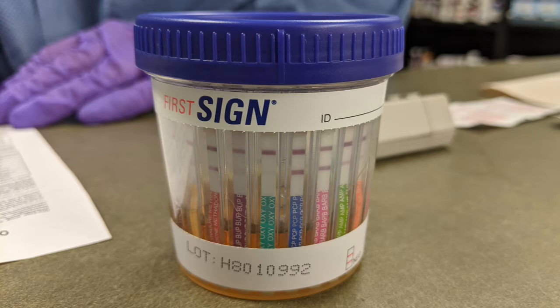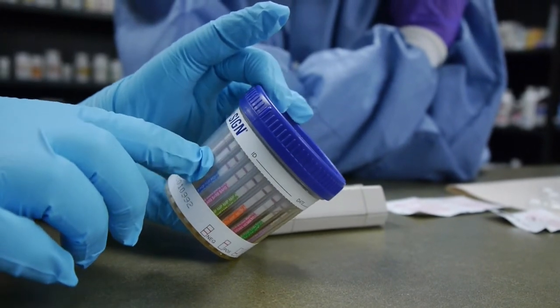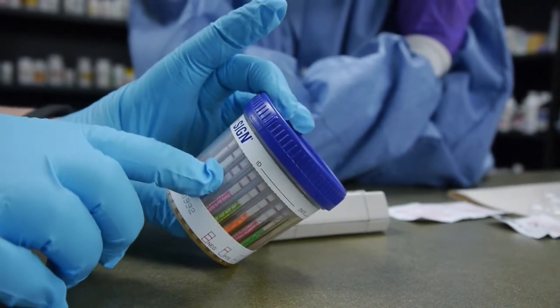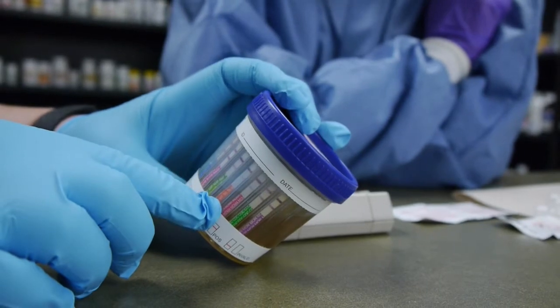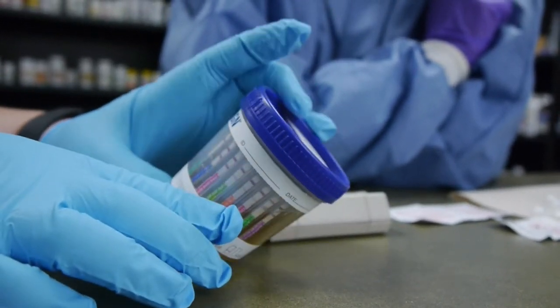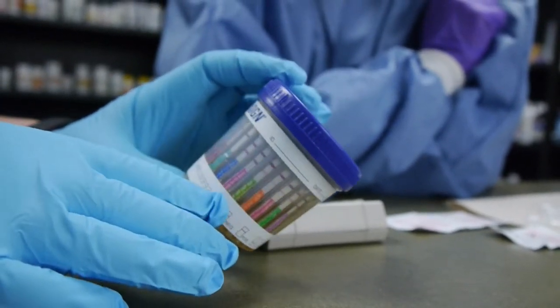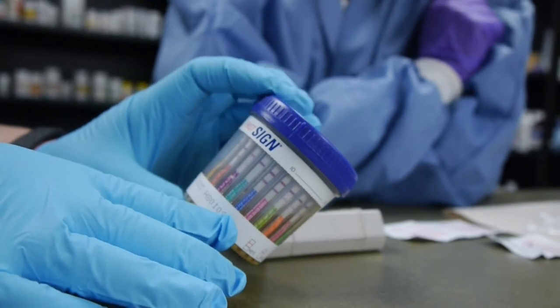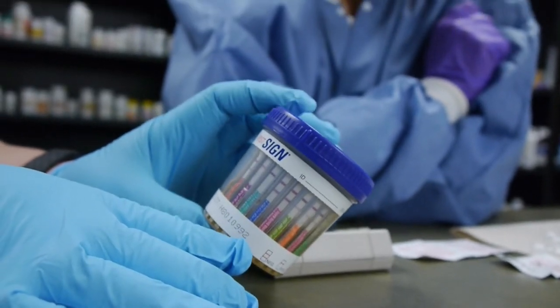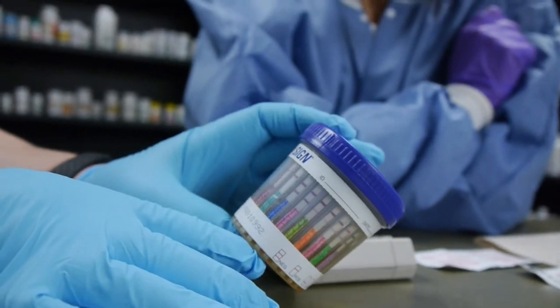It's hard to say if they would send that one out if they thought it was a drug of abuse. I can see a faint line. It's five minutes so it could technically be negative all around. That's when you go to your package insert and look at your sensitivities and your concentrations of where you have your cutoffs.